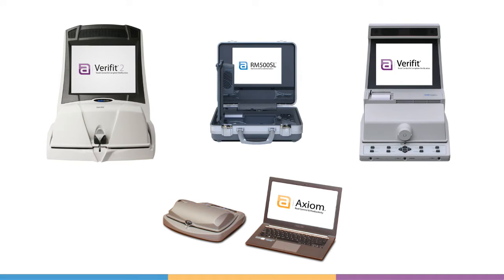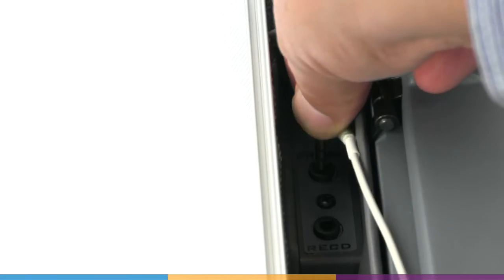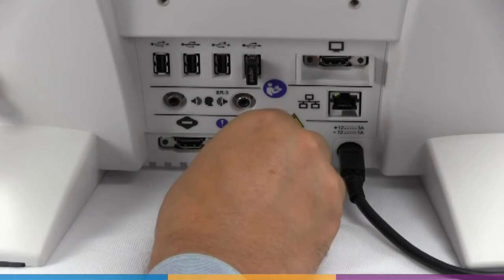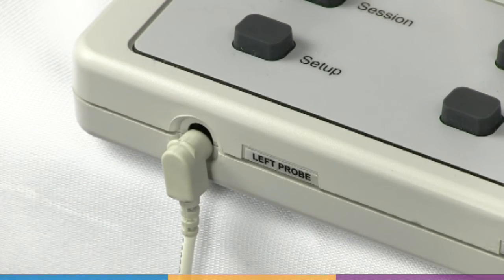In this video we'll cover the probe microphone user calibration on AudioScan hearing instrument fitting systems. First, ensure probe microphones are properly connected. If this is your initial setup, see the user guide for detailed model-specific instructions.